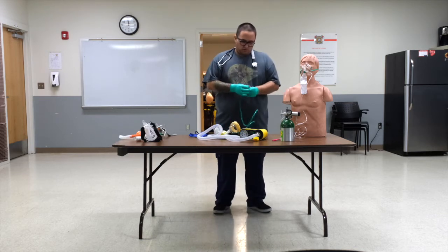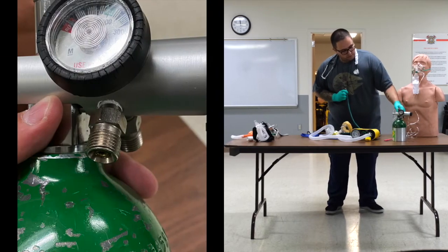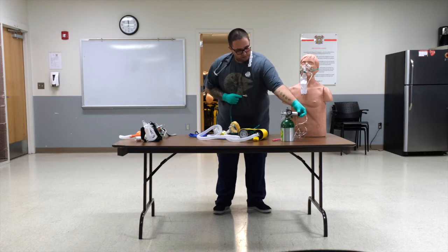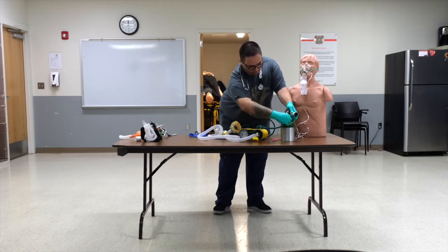So at this point, we're going to take the oxygen cable that goes off of the machine itself, and we're going to plug it right into the bypass of the regulator. And all that the bypass is doing is once this section is connected to the tank, oxygen is going to come out of these two ports first, and they have one-way valves in them, so whenever you connect the tank, it's going to activate that one-way valve, and it's going to allow oxygen to go through the hose. And it bypasses the actual regulator where the non-rebreather is hooked up. So we're going to tighten that in right in here. Whenever this is connected, that's whenever the actual machine will turn on.